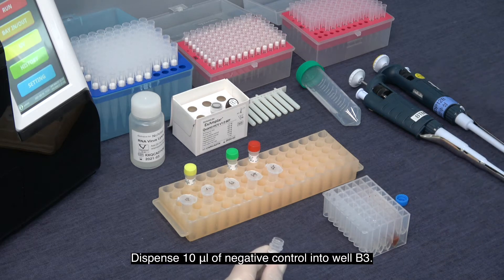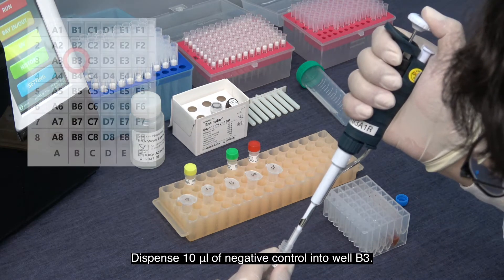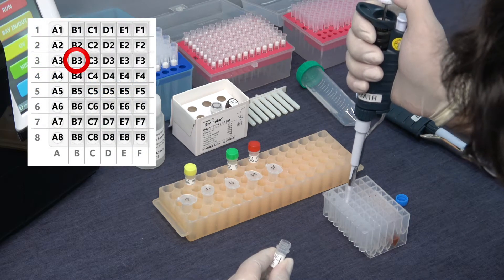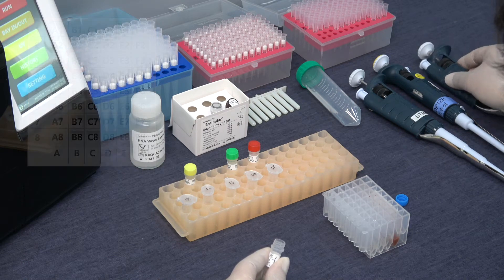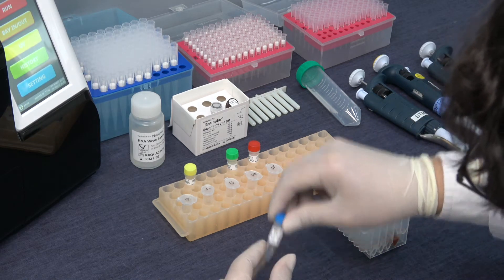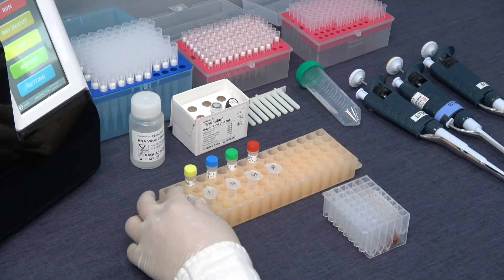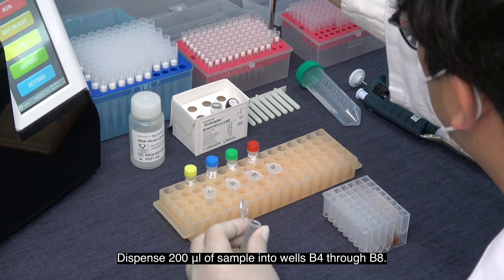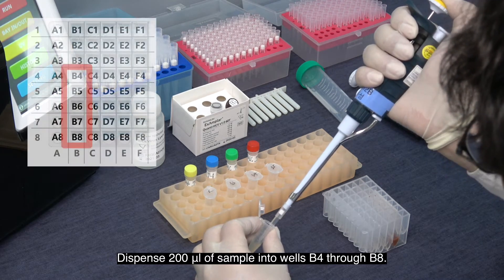When using Quanti HCV or similar products, dispense 10 µL of internal control into all lysis wells, then dispense 10 µL of negative control into well B3. Dispense 200 µL of sample into wells B4 through B8.